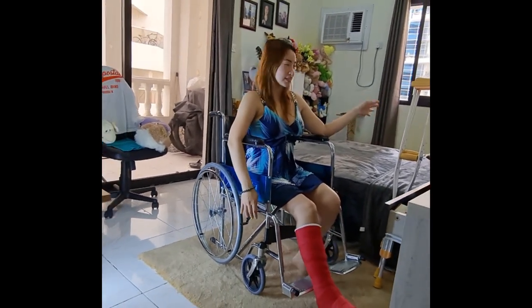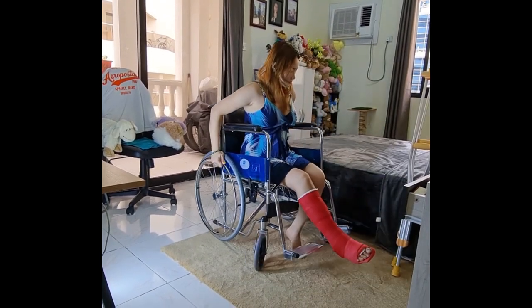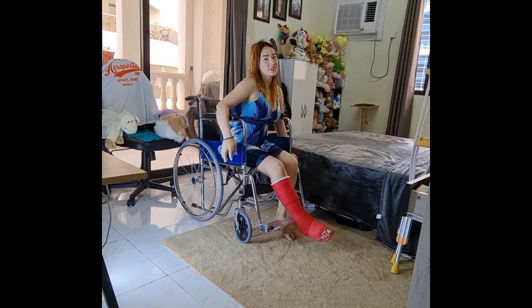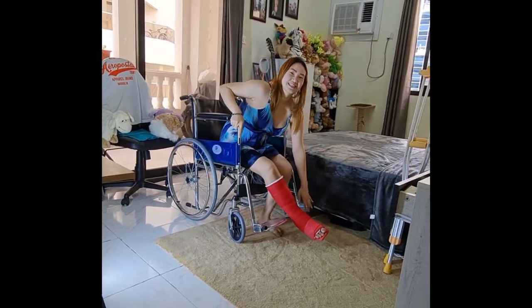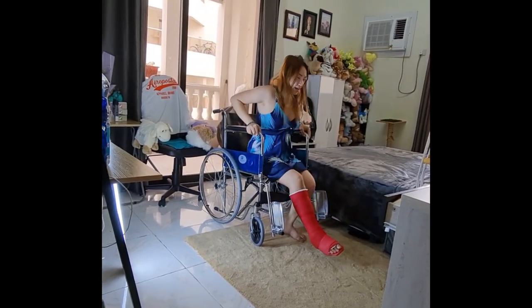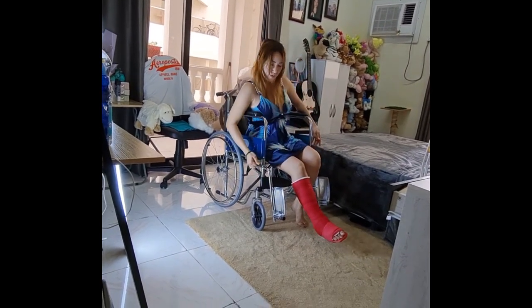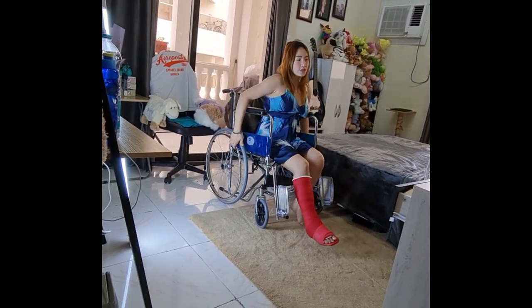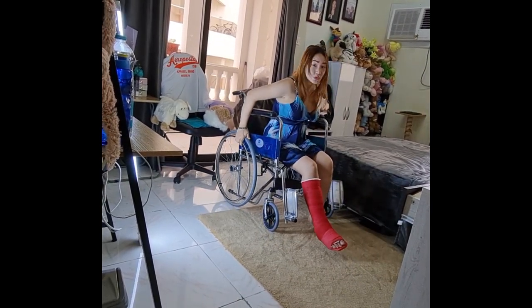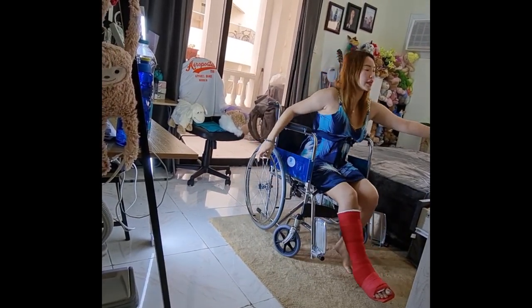Next, we'll go over crutches. As you can see guys, the weak one is hanged — I'm just comfortable in that position. It's like driving your own car but without lights. I will adjust again, because you can also use crutches if they are nearby to you.